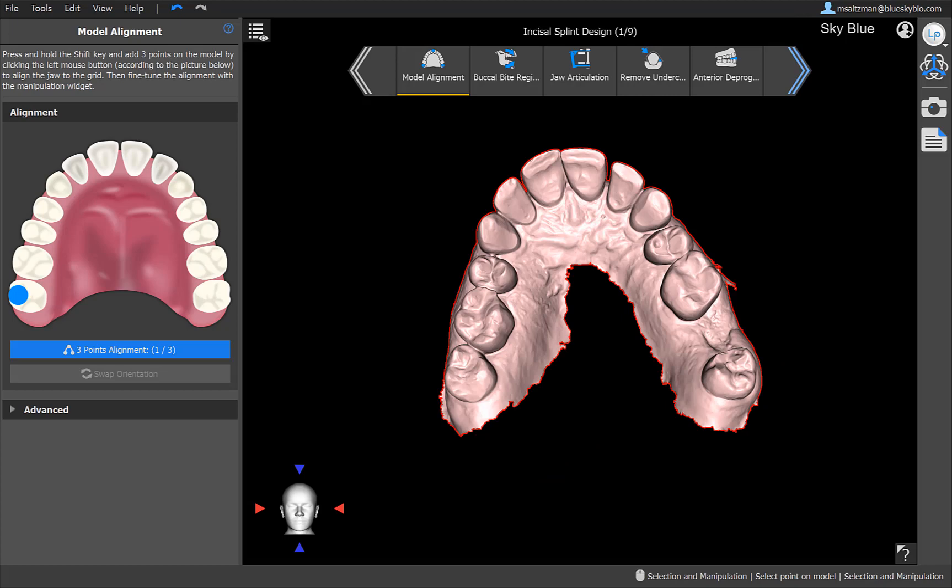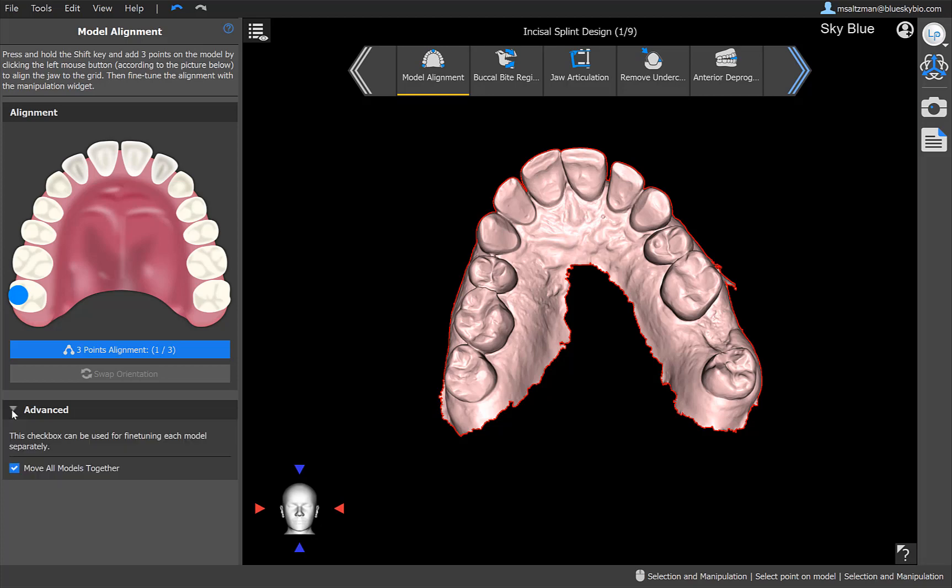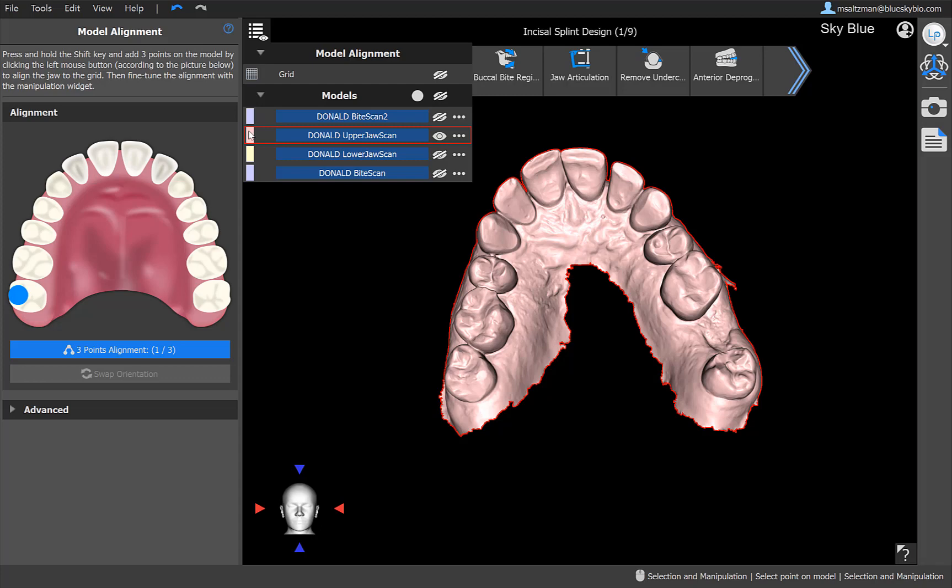Before we jump into that, let me just explain a few things on a high level about this new layout and user interface that we have here. First of all, for splint, for example, we don't have a normal mode and an advanced mode. What we did is all the normal mainstream functionality that's going to show up, it's going to show up in the toolbar in the panel on the left hand side. And underneath, we have an advanced section. The advanced section is hidden or it's rolled up by default. You could access advanced functionality just by clicking downwards and opening up that advanced functionality.